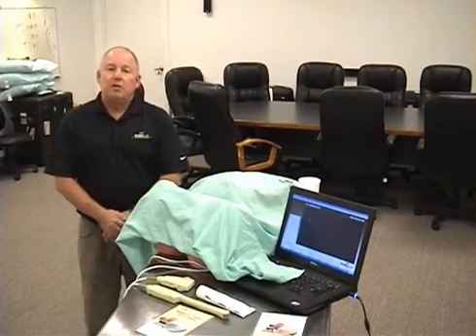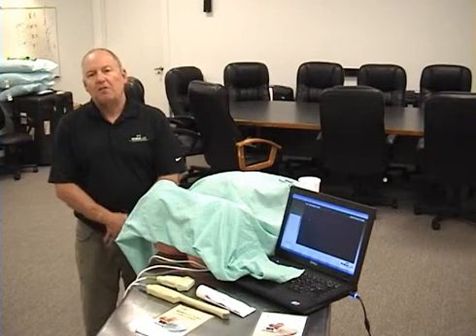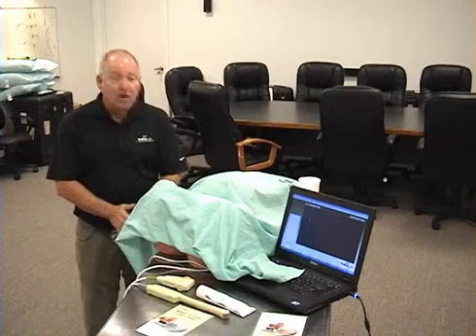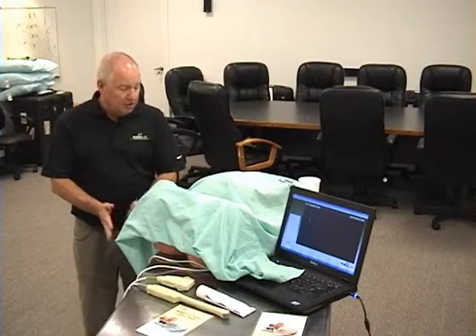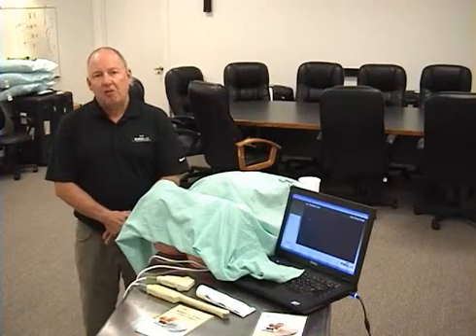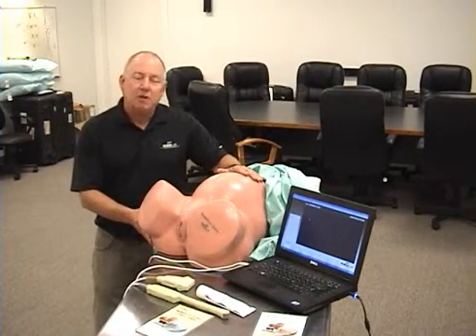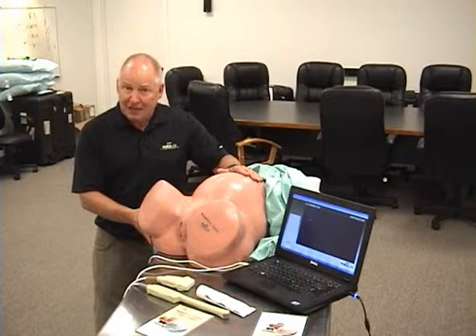This is a short video to demonstrate the Simulab ultrasound diagnostic trainer. The Simulab is designed to teach students how to read diagnostic ultrasound in a potentially pregnant patient. The system includes a torso simulating 6 weeks to 40 weeks gestational age.